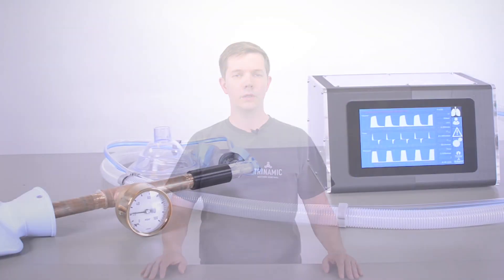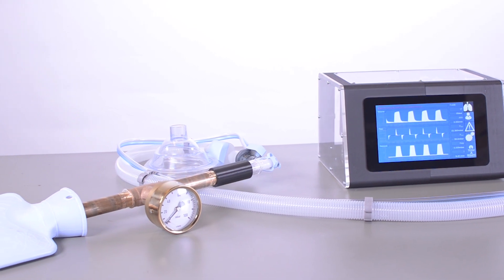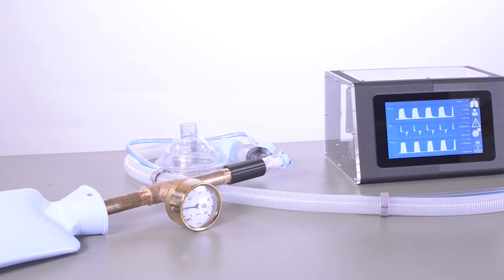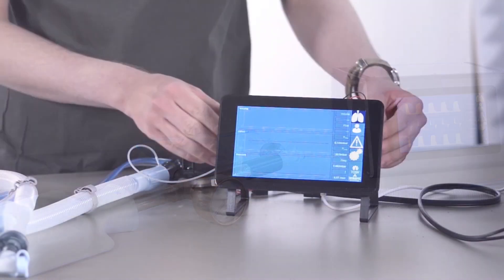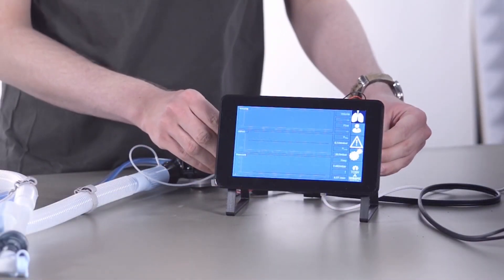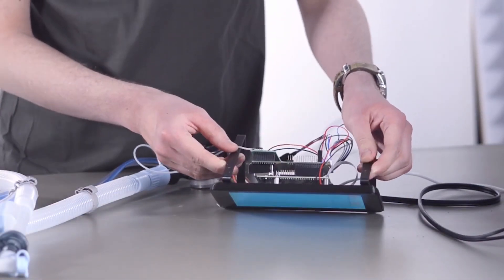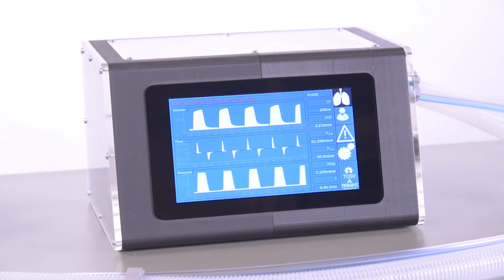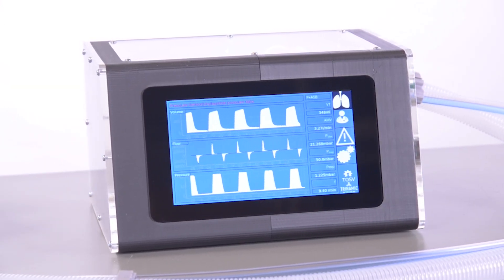And this is what we came up with. TOSV — the Trinamic Open Source Ventilator — is a reference design including everything necessary for the inner control loops of a medical ventilator. It interfaces to a single board computer or IPC to offer a user interface. In our demonstrator we use a Raspberry Pi 4 and a touchscreen display.